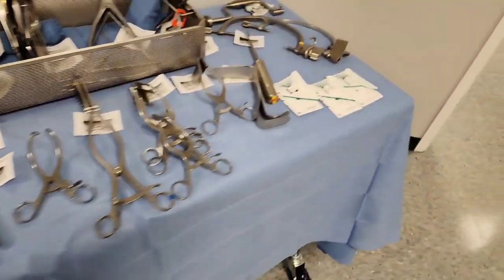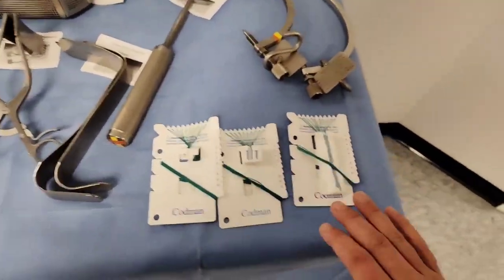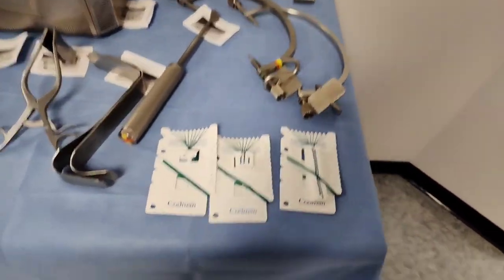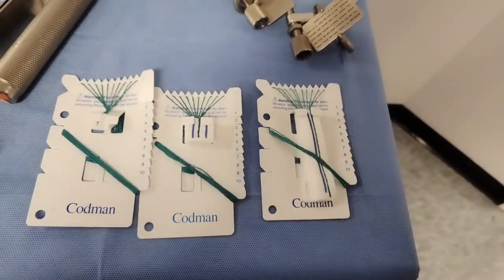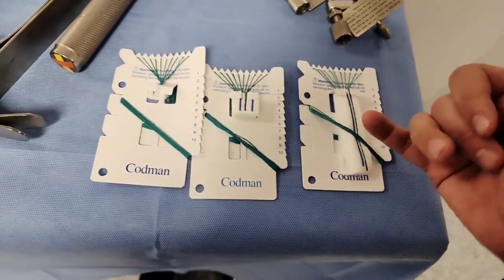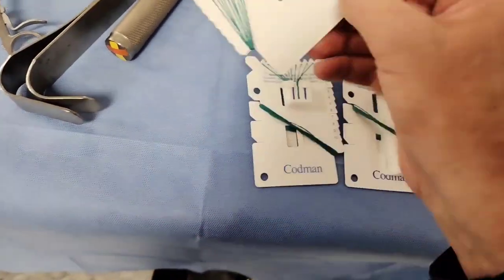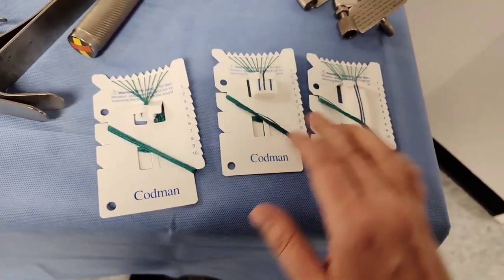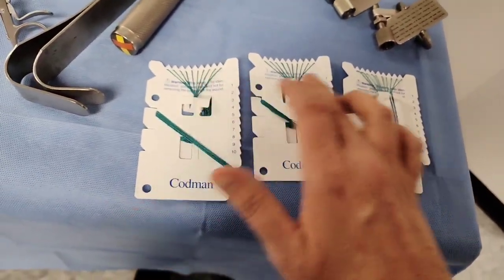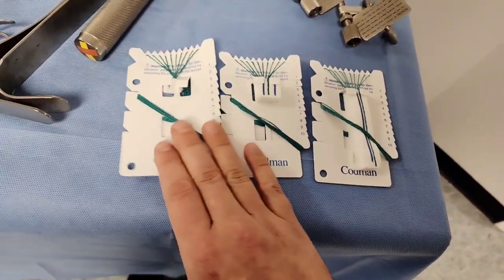Down here are some supplies called cottonoids or patties. They have a radiopaque marker so they can show up on x-ray. These are essentially sponges for neuro. They come in different sizes — you can see they come in a 10-pack. These are countable items and come in half-by-half, three-by-three, and many different sizes.